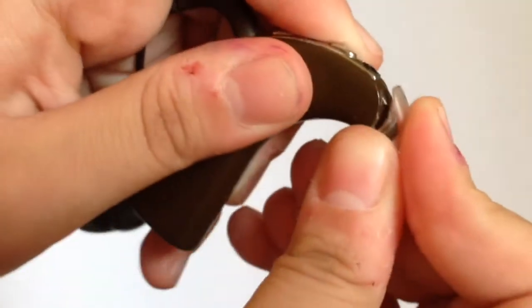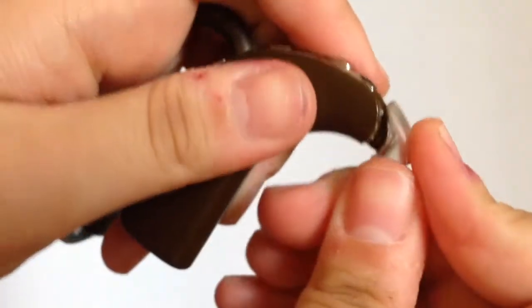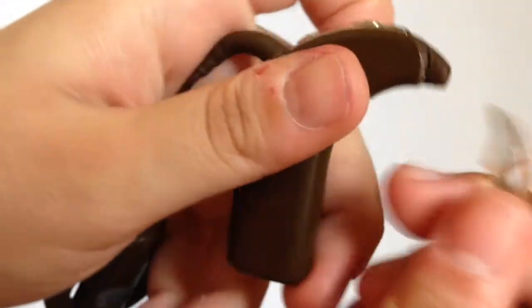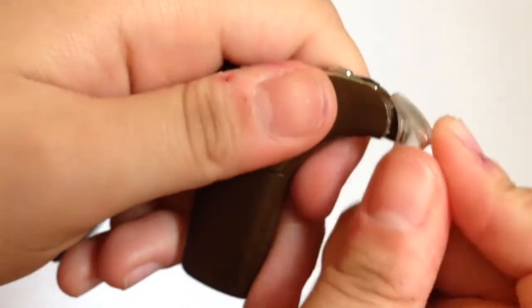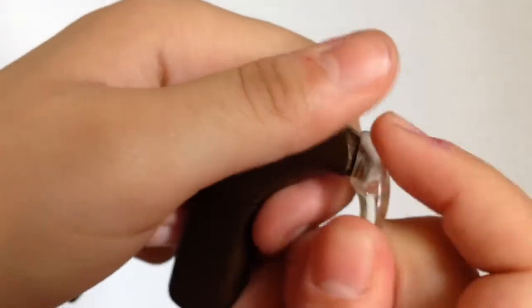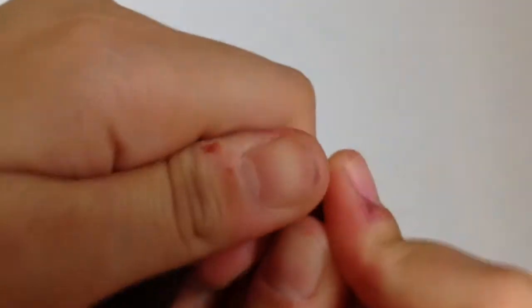So you just basically align it with the cochlear implant. And then you just snap it. Snap it really hard. It goes on really tightly, so obviously to put it on or take it off is kind of complicated. But you just have to snap it into place, on both sides.